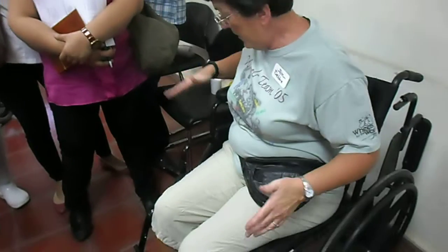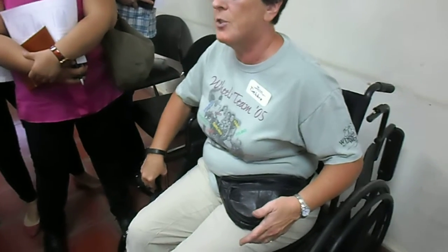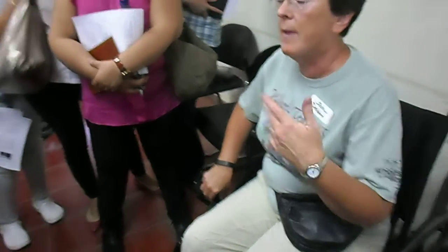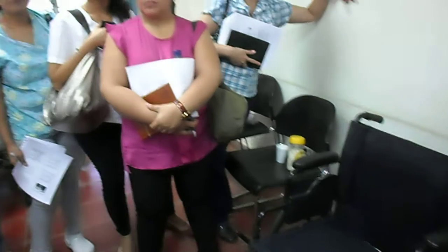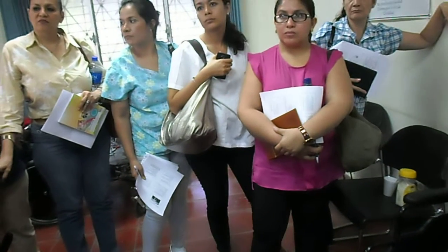So if you need someone that needs that type of a transfer, this would be an excellent chair for that. If you guys don't use sliding boards and don't teach your people sliding board transfers, that's something they could easily have made here — the sliding boards. They say that they are like wooden boards. For people who are very weak in the legs, or who seem to be paralyzed and who can't move at all, it would be good to teach them how to do things like this.